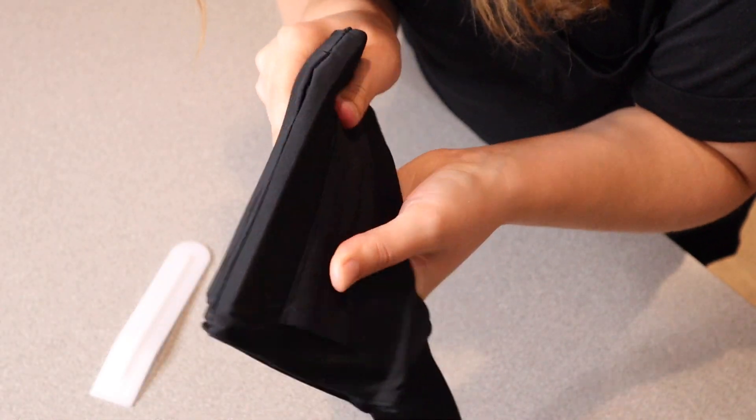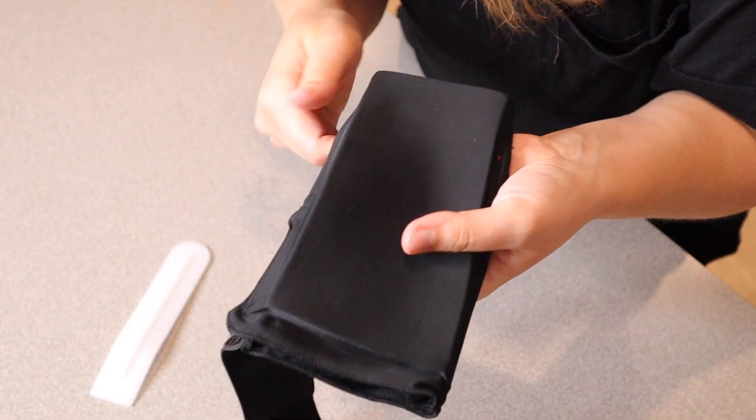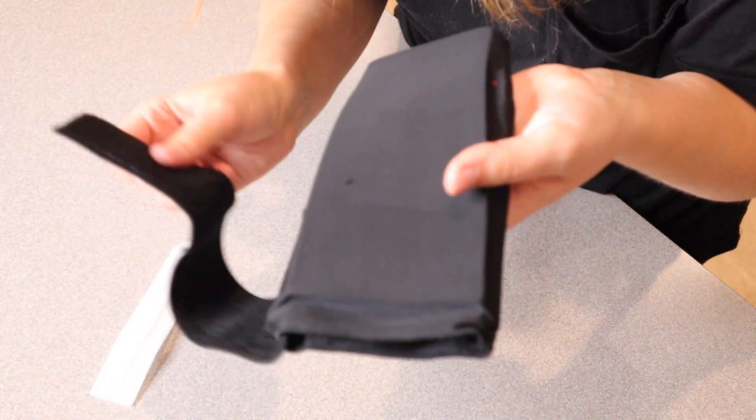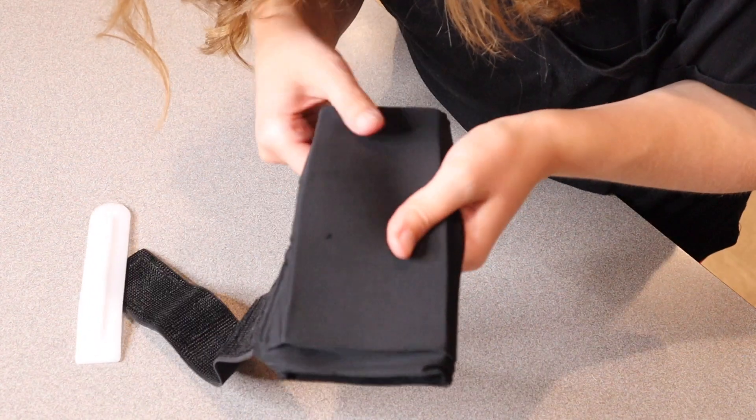It feels really nice and comfortable and even without being frozen it's still cold to the touch. It does have this wraparound velcro so you can adjust this to whatever size you need it for.